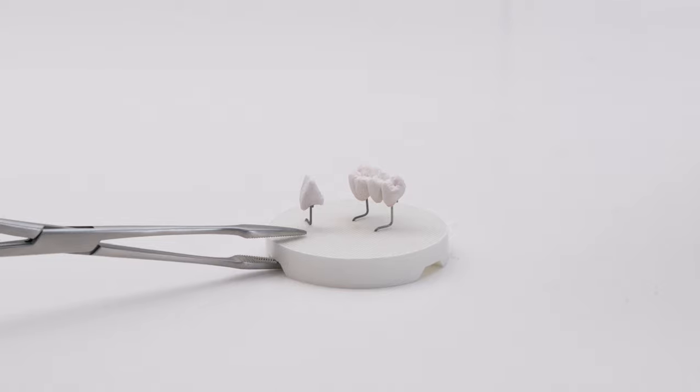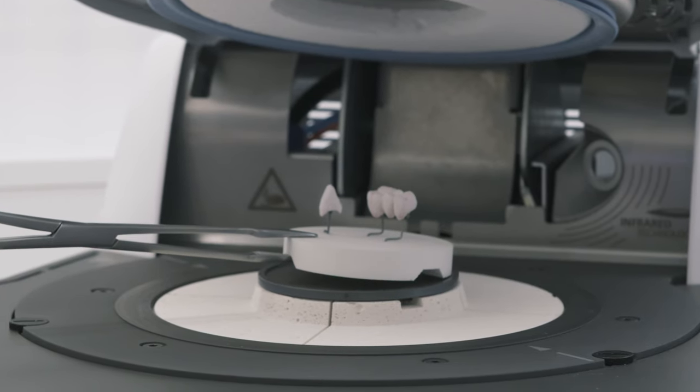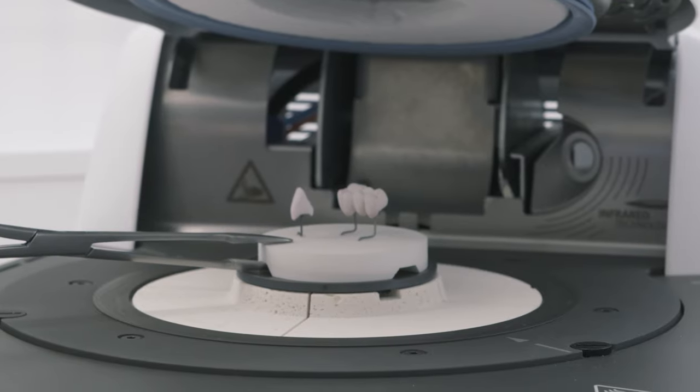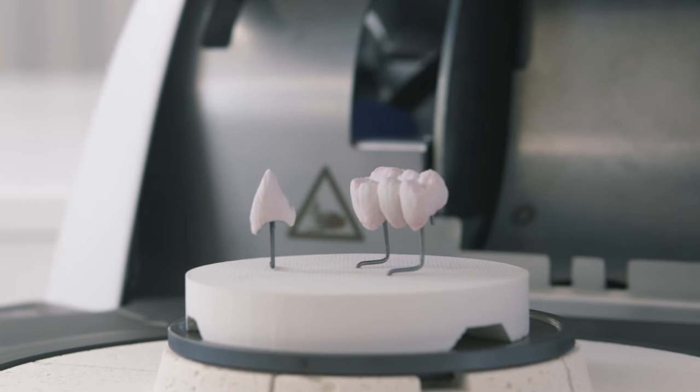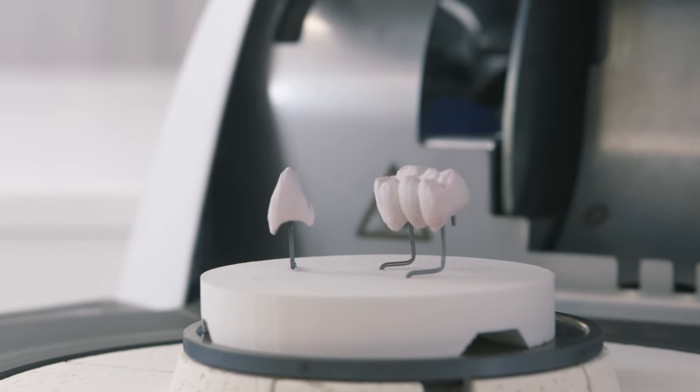Do not load the firing chamber with objects that have already been warmed up. The objects to be dried should be more or less at room temperature. The firing tray or objects must not be moved once the firing program has started to avoid faulty measurements.